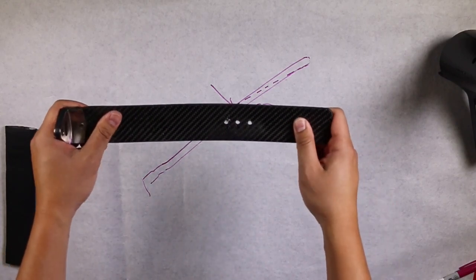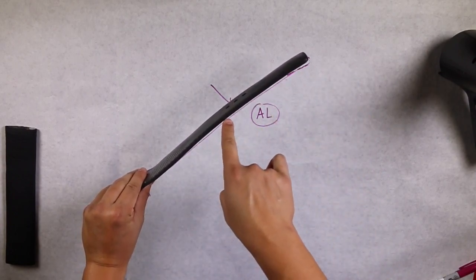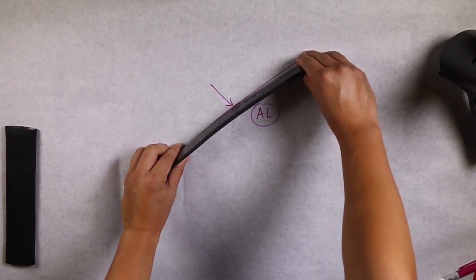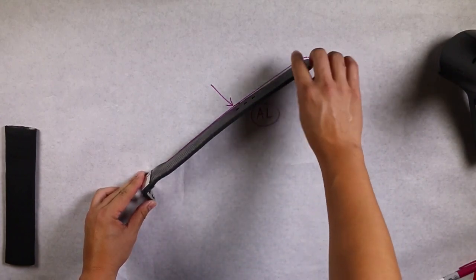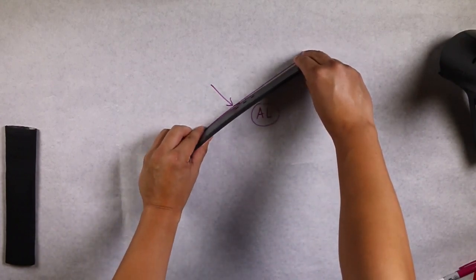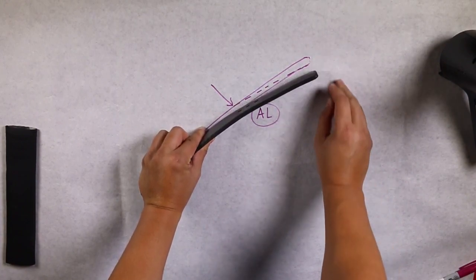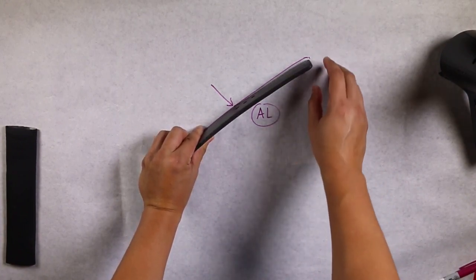Place the warmed and heated strut along your tracing and position the contour to your desired finish position. There will be approximately 45 seconds to 60 seconds of working time to reshape the strut.